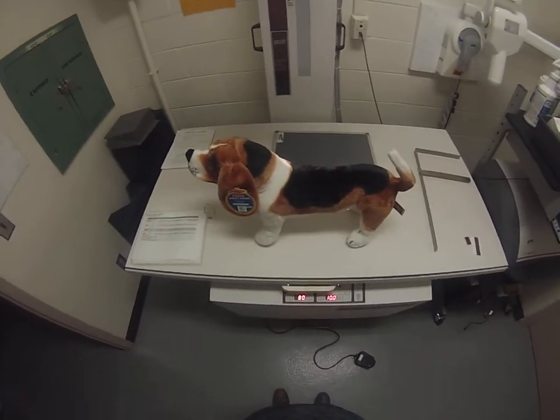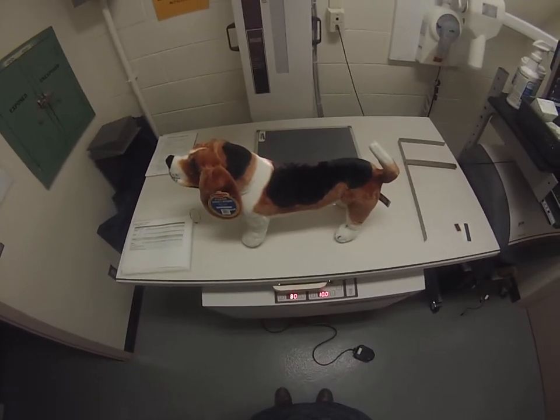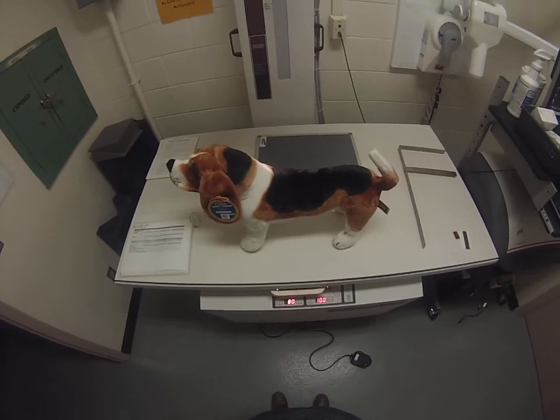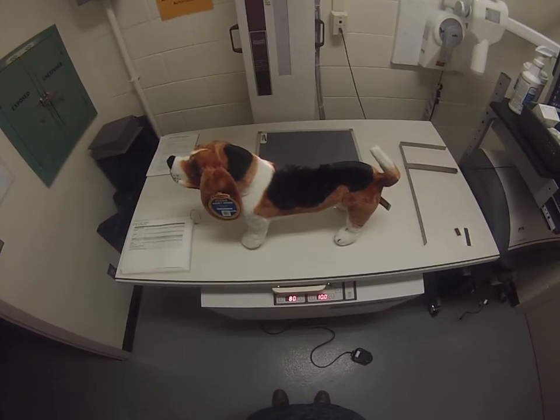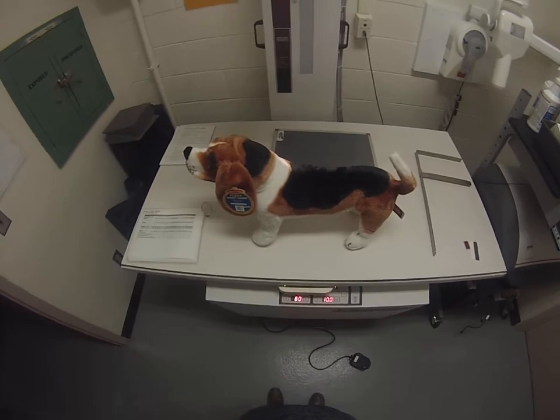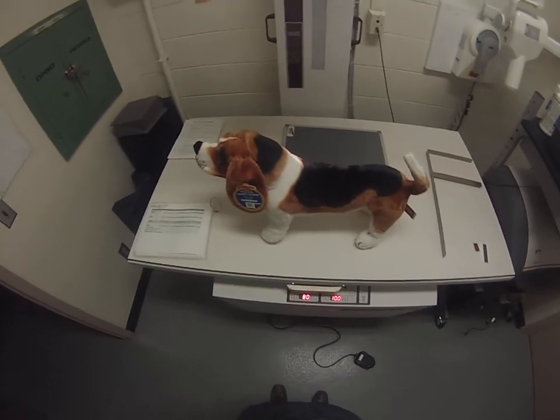Hello again. In this video, I'm going to discuss how to measure your patient and then determine the MAS and KVP that should be used for the specific view you are taking.